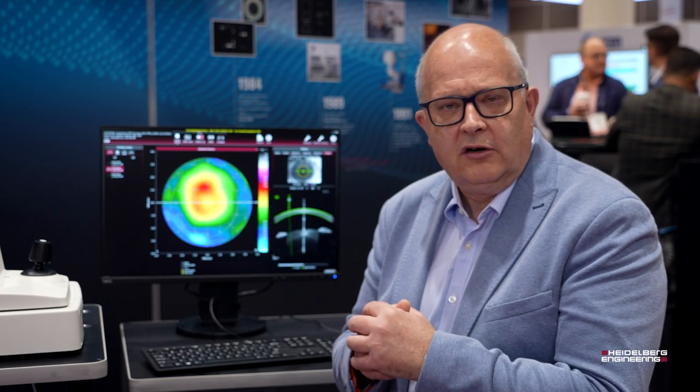We can then segment this image and it allows us to make predictions over the curvature and therefore the power contained in the cornea. We can also look at very small details as fine as the epithelial map. The epithelial maps are highly reliable and highly repeatable, and we have shown repeatability down to a level of one micron.